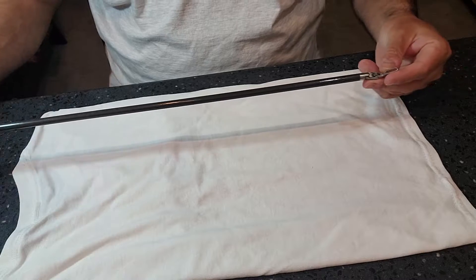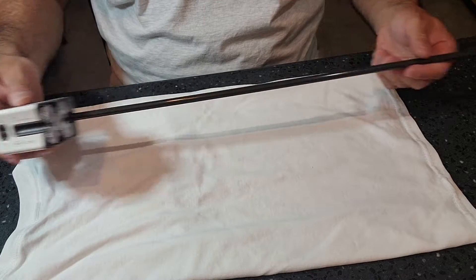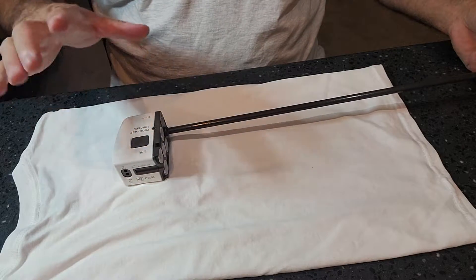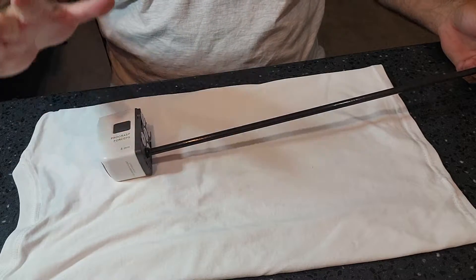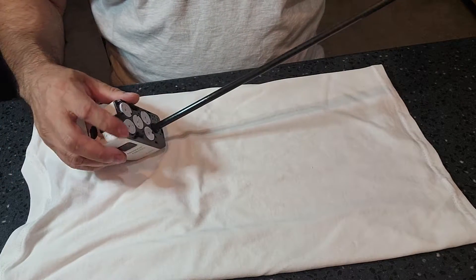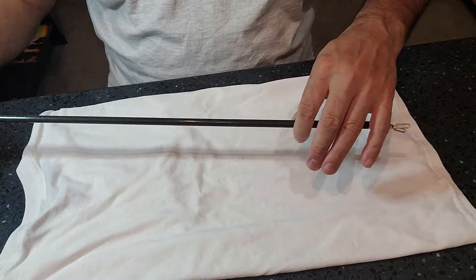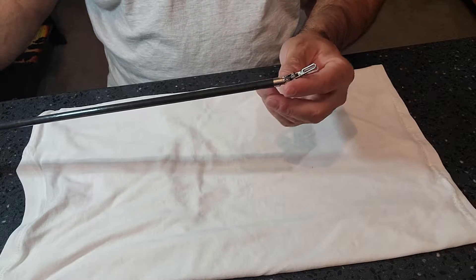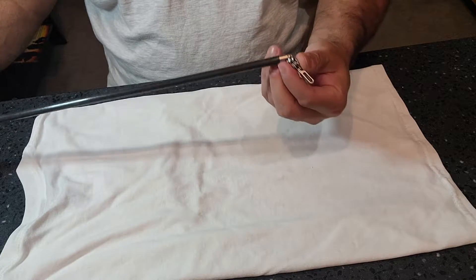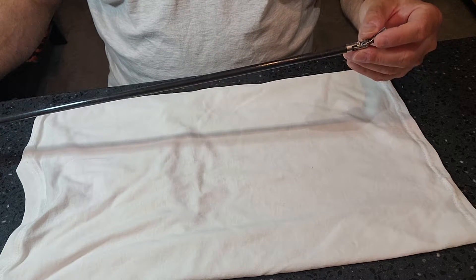It is an upgraded laparoscopic instrument, a minimally invasive surgery type instrument — completely robotics. What do we know about it? There are some electrical components on the proximal end, followed by some controls, a sheath that is fully insulated. And we have in the distal tip a rotating 360-degree arm that does all kinds of stuff. This thing is operated by a control center away from the patient.